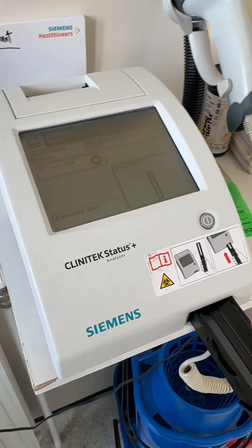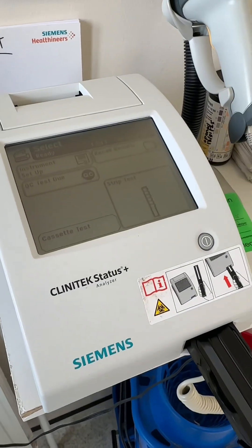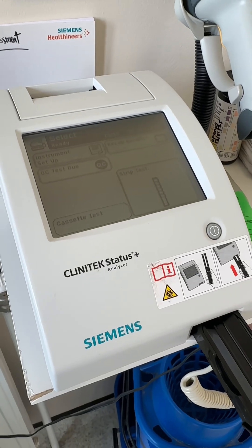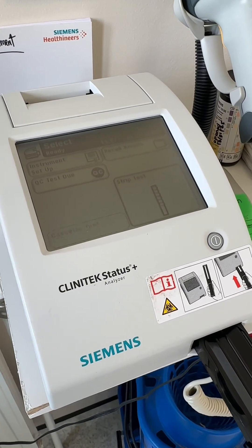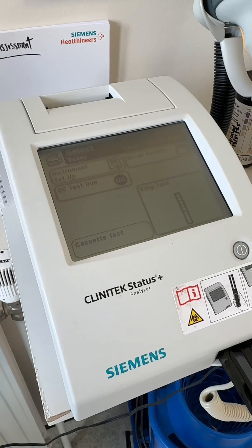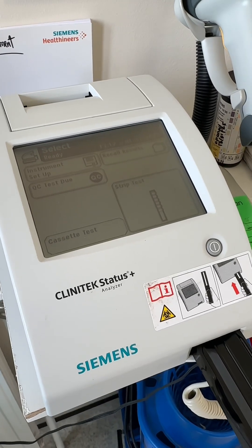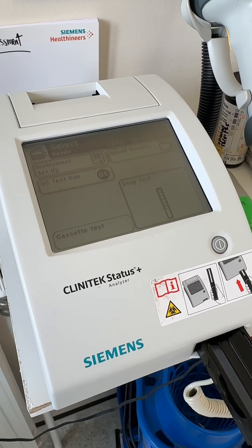Hello, good morning. It's Sean, one of your POCT leads. For today I want to show you how you can do a urinalysis and pregnancy testing.